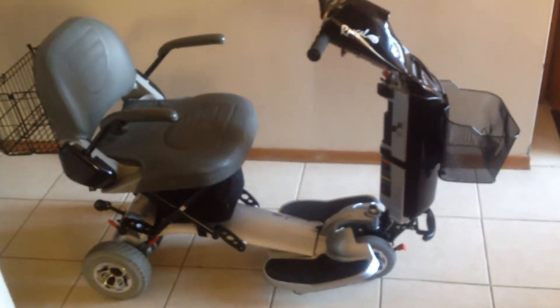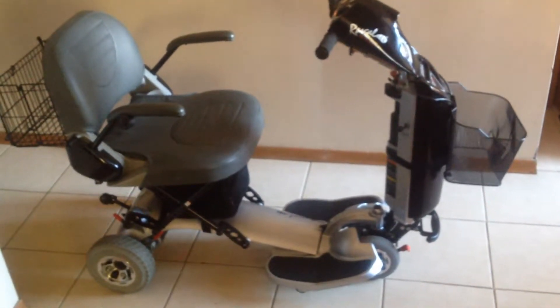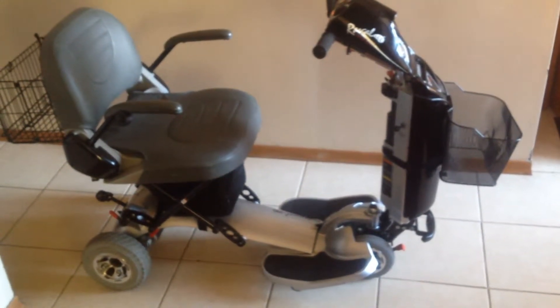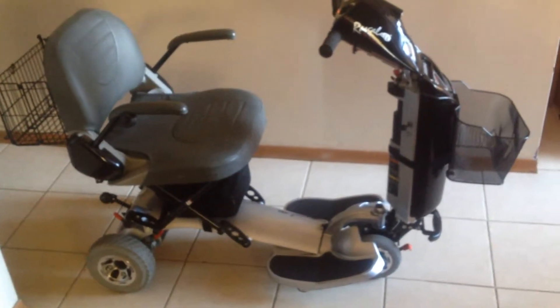There are a lot of scooters on Kijiji — someone dies, someone moves to a wheelchair. Most of them are the fixed type that are not really portable and are hard to get around. The beautiful thing about the AutoGo is that it's completely portable — I'm going to show you how.